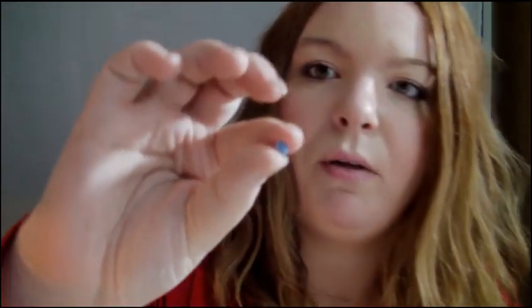It's going to be very hard for me to actually show my bite block, but when one fell out like I was explaining, I actually kept it. I will show you — it's not uncomfortable; you have to get used to it, but it's not something you'll notice every single day once you get used to your braces. This is what my bite block looks like. It's kind of like if you're feeling a tooth, and it's placed on top of your tooth so that you don't bite the bracket and cut your mouth open.